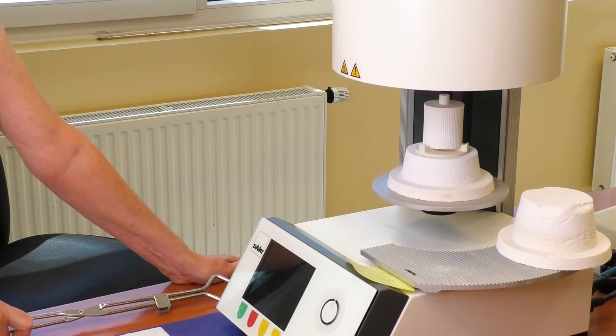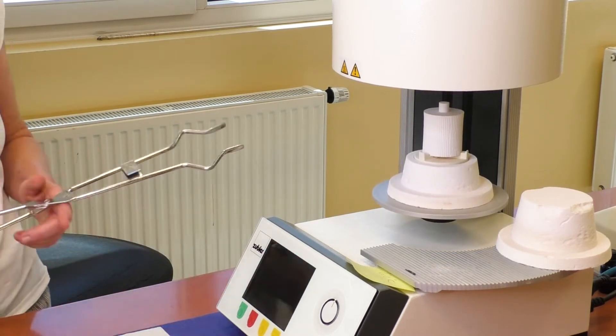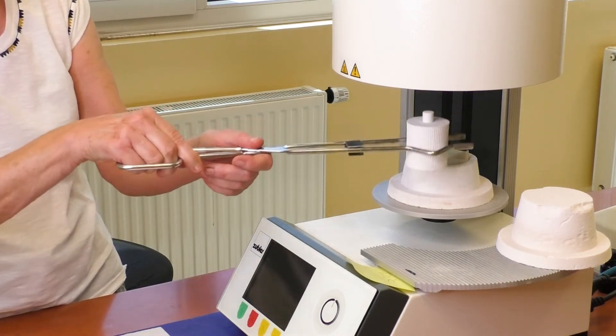Cool down the pressed cylinder at room temperature only. Faster cooling can lead to cracks.